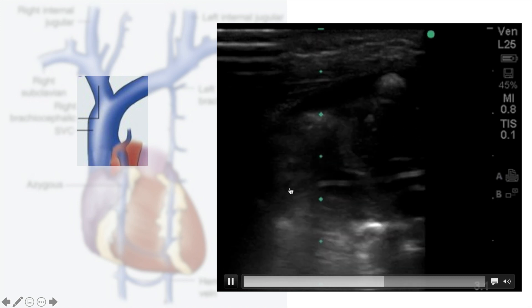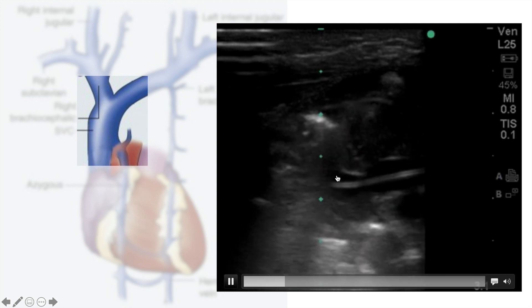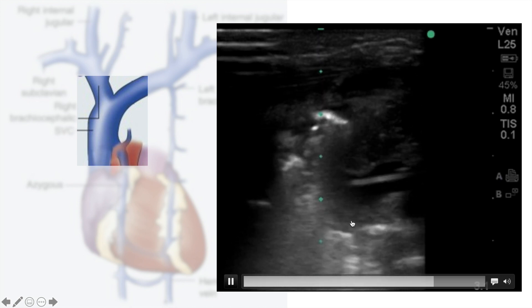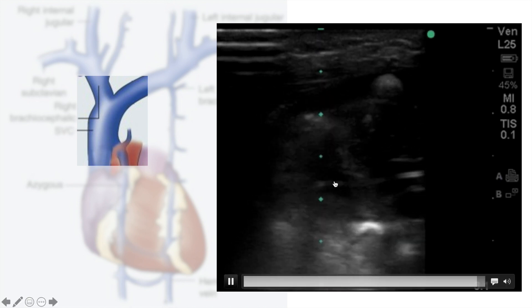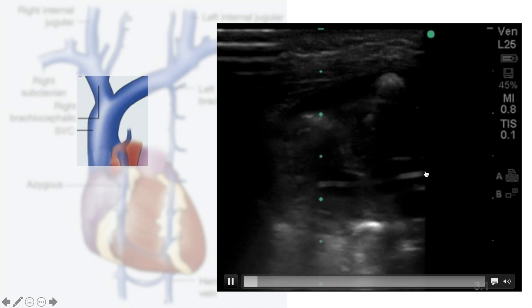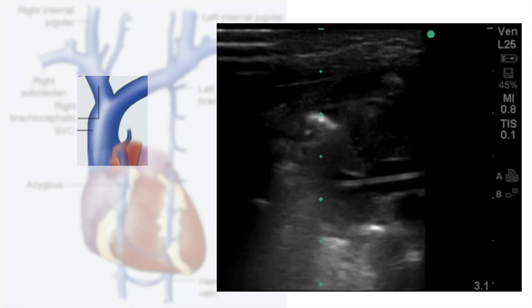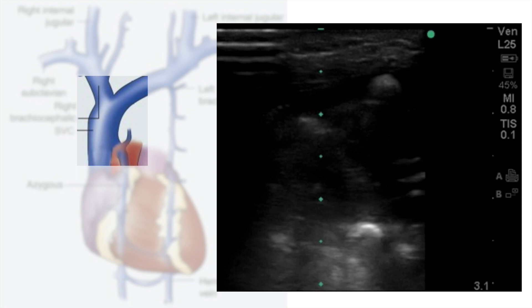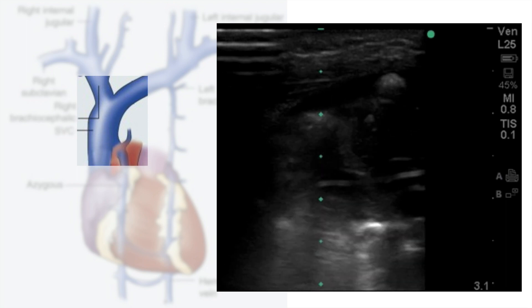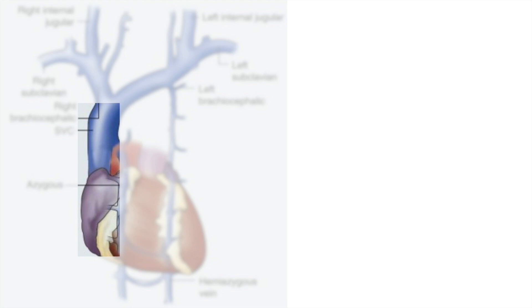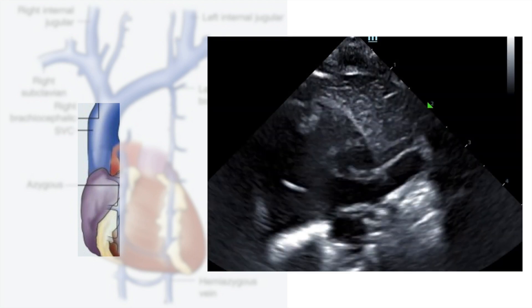This is an example of a PICC line in the right arm. As you can see, the PICC is coming from the right brachiocephalic but instead of turning into the SVC, it's crossing to the contralateral brachiocephalic. Some people will leave it this way until the next day and repeat the X-ray, while others will adjust it right away.